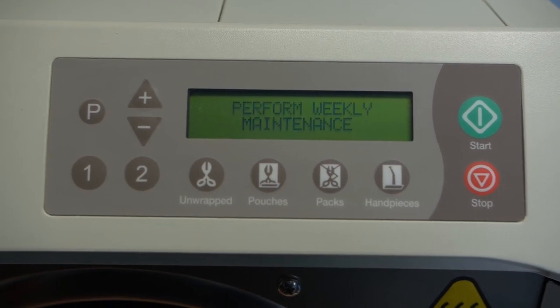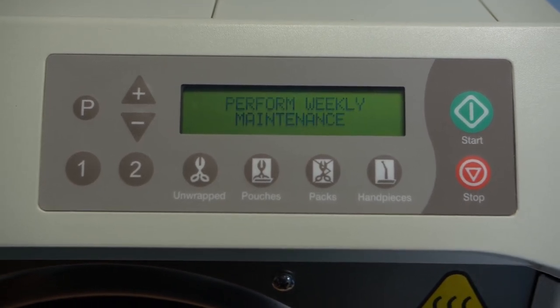Clean and service the autoclave regularly. Perform the required quality control steps on a regular basis according to your practice policy and the manufacturer's instructions. Monitor sterilization indicators with each use and document on a log with the date and your initials.